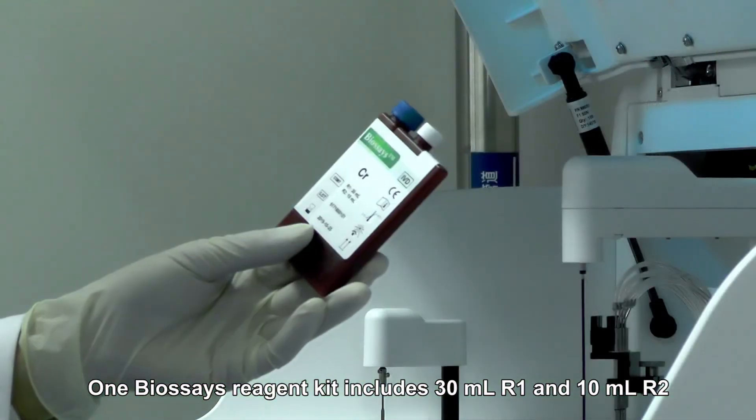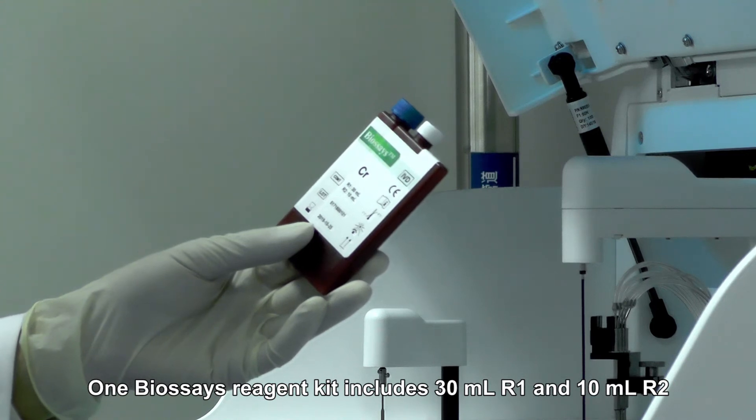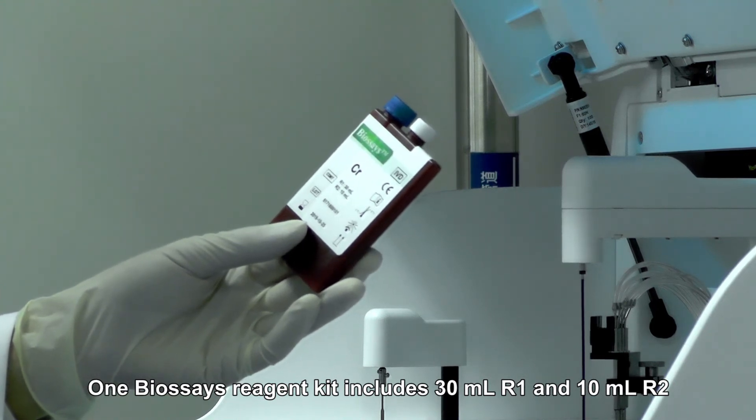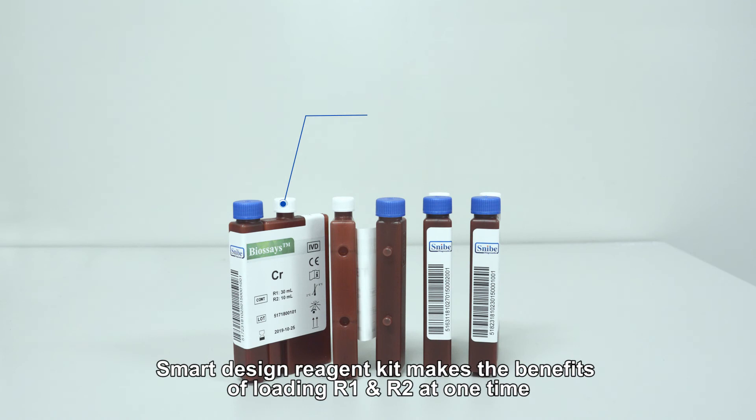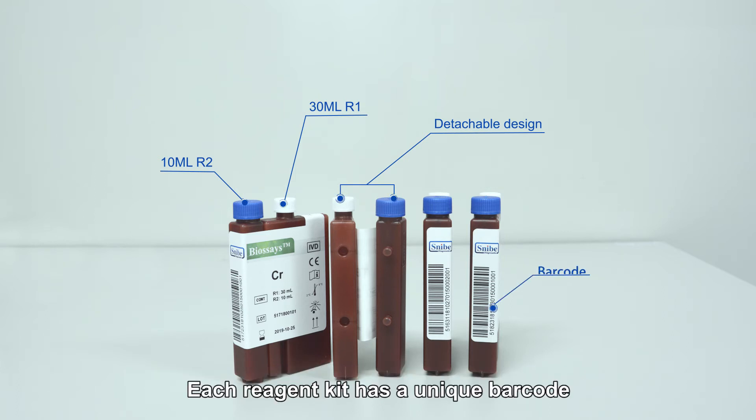One BioSays reagent kit includes 30 milliliters R1 and 10 milliliters R2. Smart design reagent kit makes the benefits of loading R1 and R2 at one time. Each reagent kit has a unique barcode.